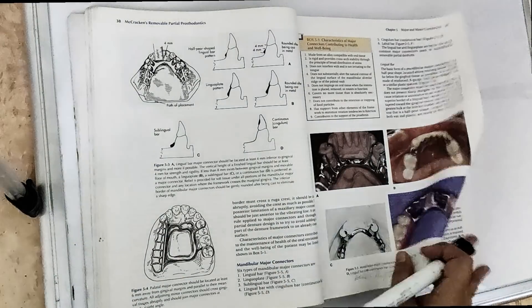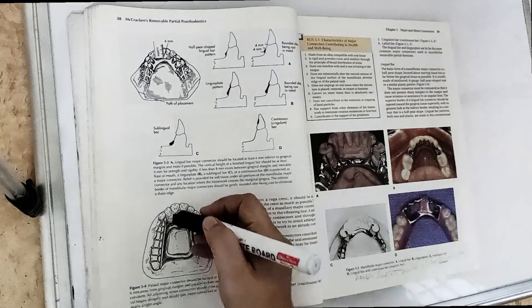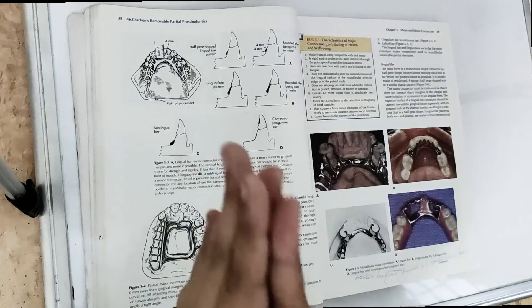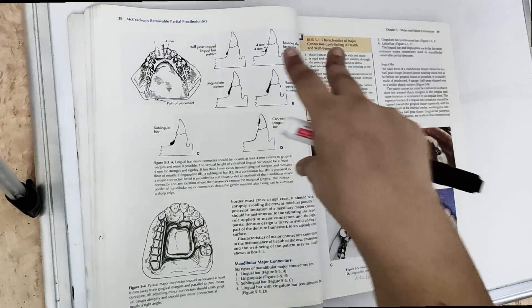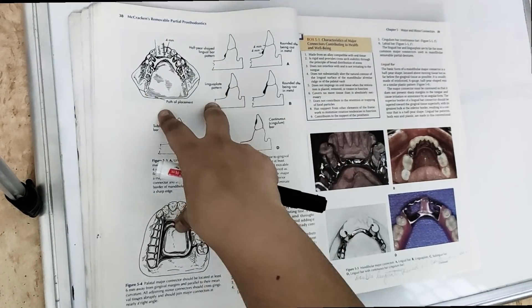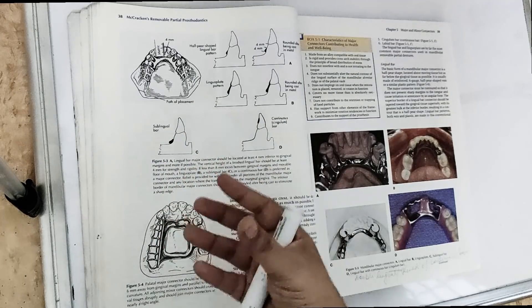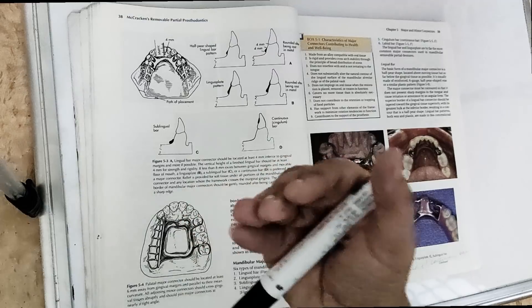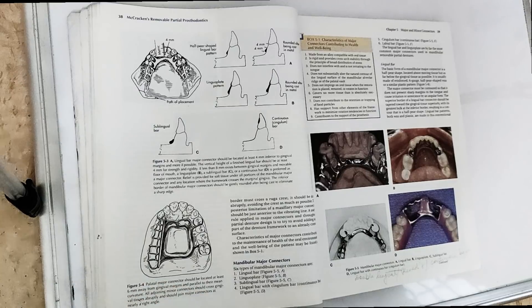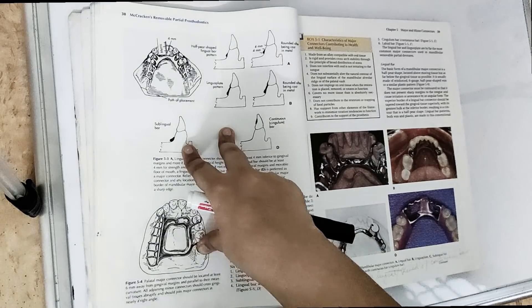Last video we spoke about the maxillary major connector. The difference between maxillary and mandibular major connector is that we did beading in the maxillary major connector — we scraped out a little bit of cast so there is positive contact. But in the mandibular major connector, we are not making tight contacts; we are actually giving some relief, especially in distal extension cases.